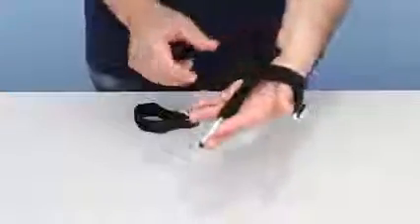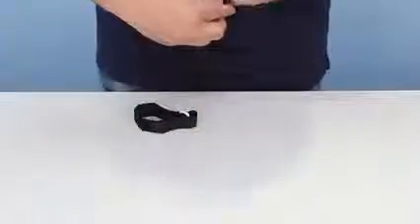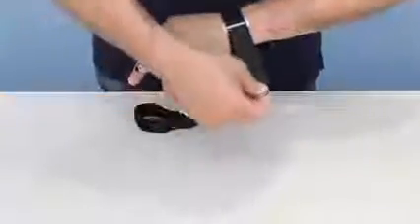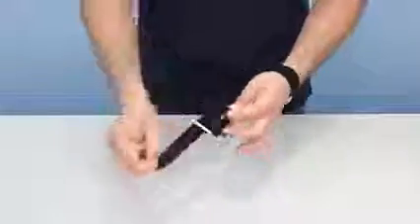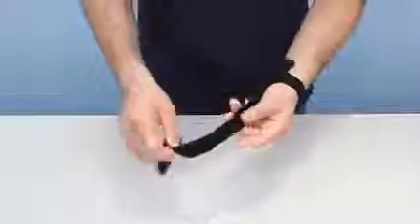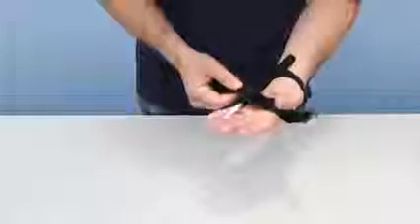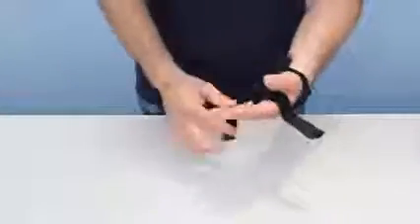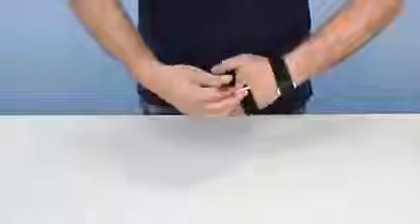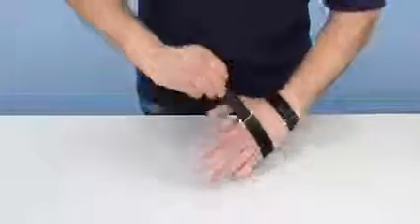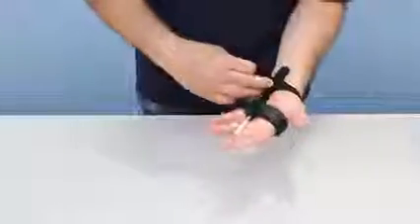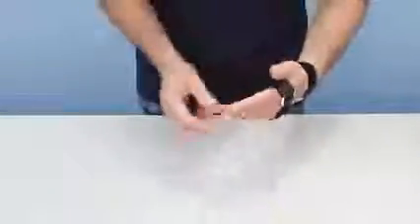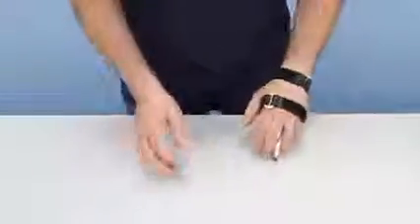So with each one of these, line this up, and you can adjust this for your individual's comfort. When you use the iPad here, just to show you how this works.